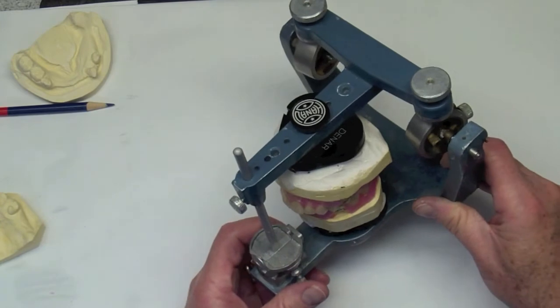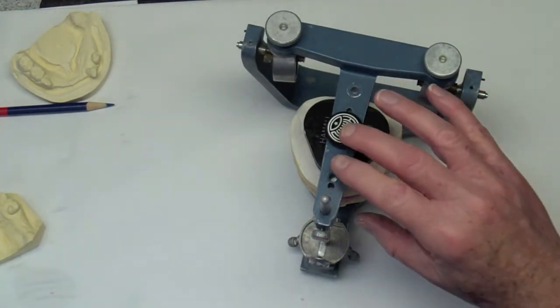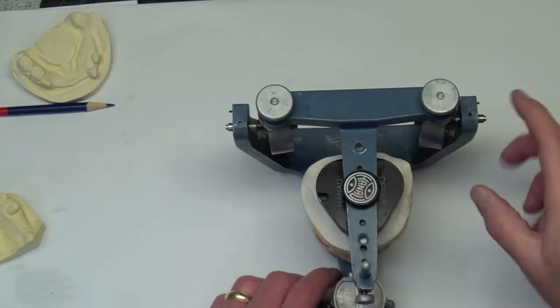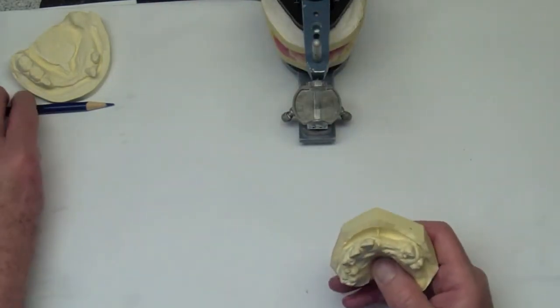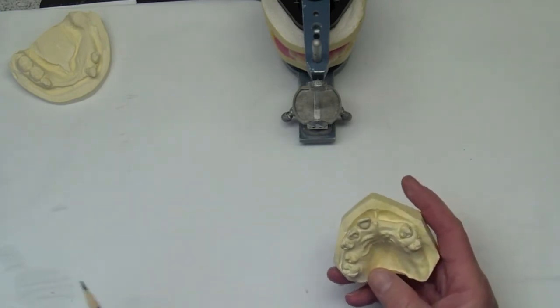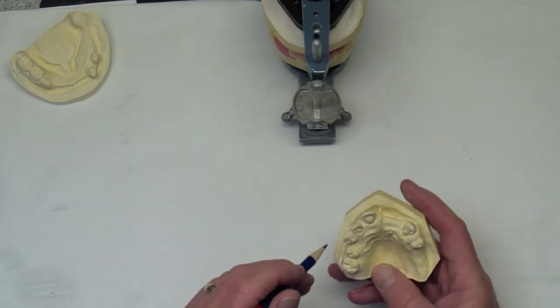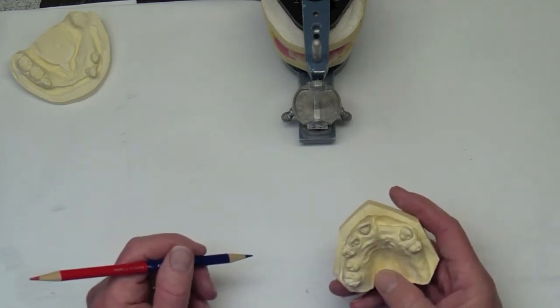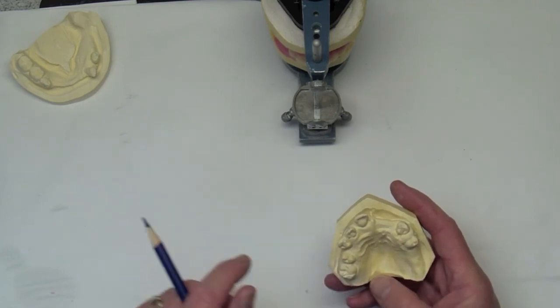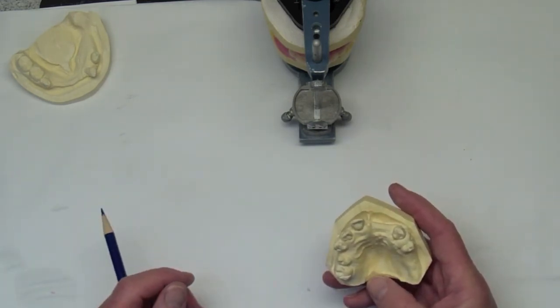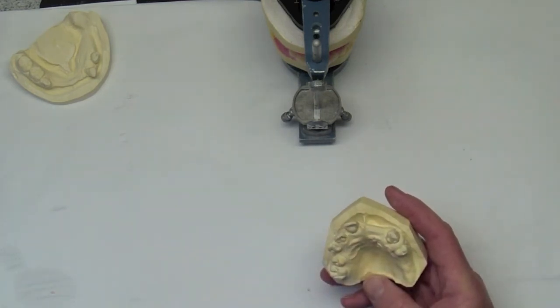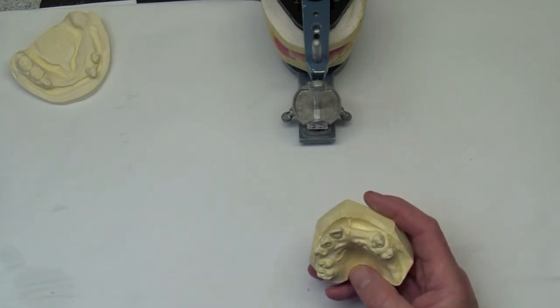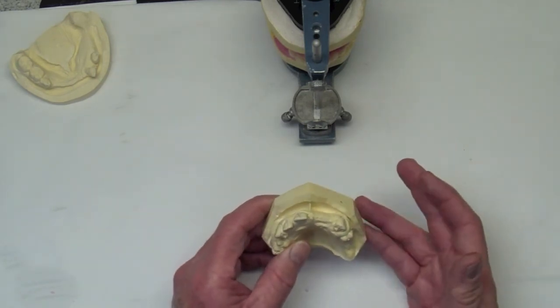Next time we'll show what's being done for the immediate denture itself. We're going to do what's called the Campagna technique for making the maxillary denture. And what this means is basically we'll have a tray that will extend down to about 3 millimeters into the depth of the vestibule. And this is so we can border mold it. And so the tray will actually have cutouts around the remaining teeth which will be, hopefully, these three for the maxillary arch. And the tray will fit down over it and these will just poke up through it. We'll border mold the tray as you would for conventional denture. And then go ahead and pick up the entire impression in an alginate impression. So sometimes it's called a sectional impression. And this particular technique was described by Campagna, so it's sometimes called the Campagna technique.